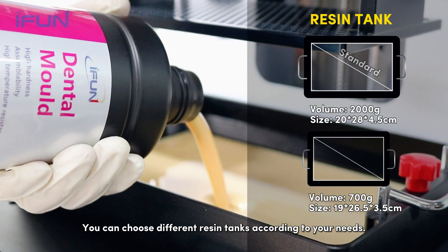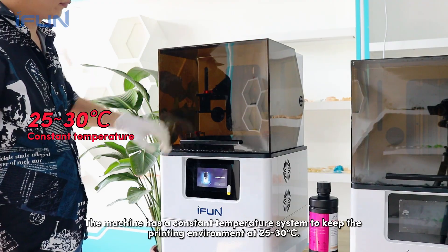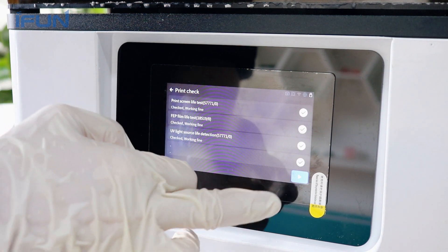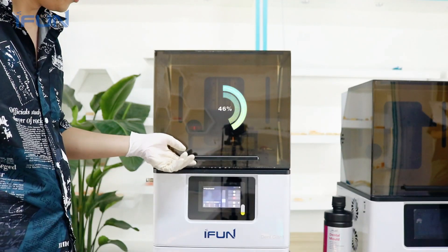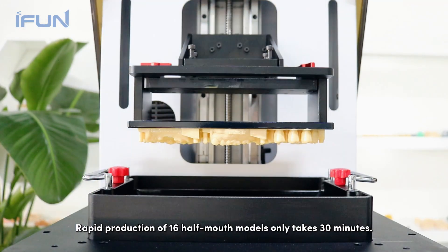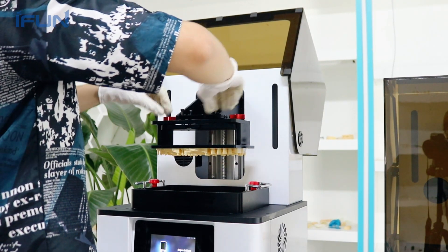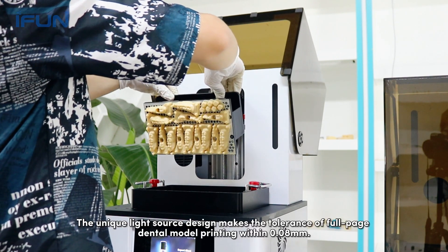The machine has a constant temperature system to keep the printing environment at 25 to 30°C. Simply select a file and start printing. Rapid production of 16 half-mouth models takes only 30 minutes.